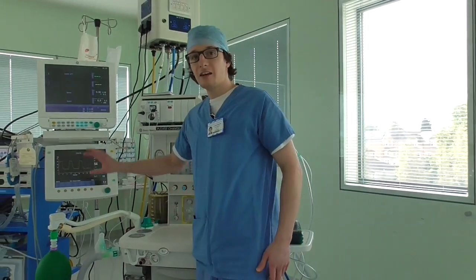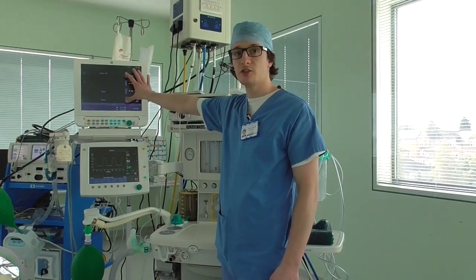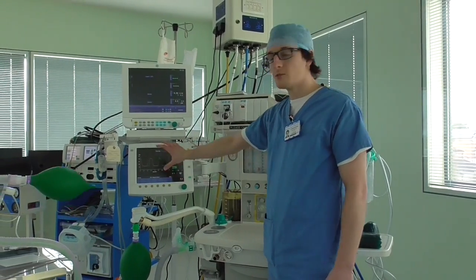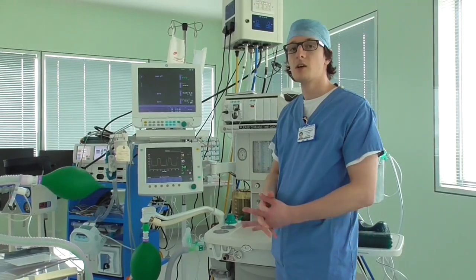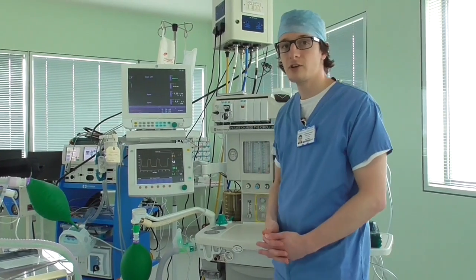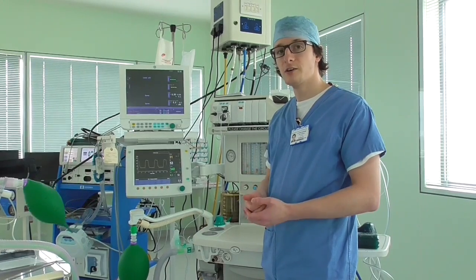On the left we have two screens which provide monitoring — on the top, the patient's vital signs, and on the bottom it tells us about ventilation settings. Ventilation is the act of delivering a volume of gas with a volume of pressure to a patient to inflate the lungs.